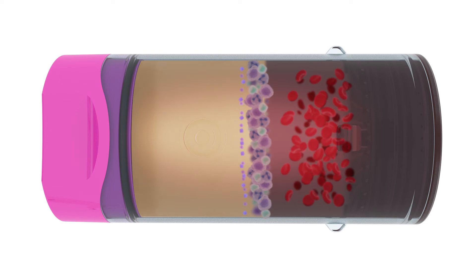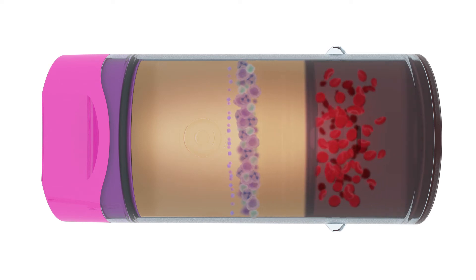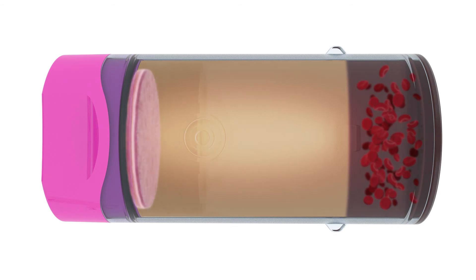When coagulation is completed, the filter lifts and compacts the cells into a robust triple-layer patch, creating a unique bridge to help compensate for a reduced blood supply.